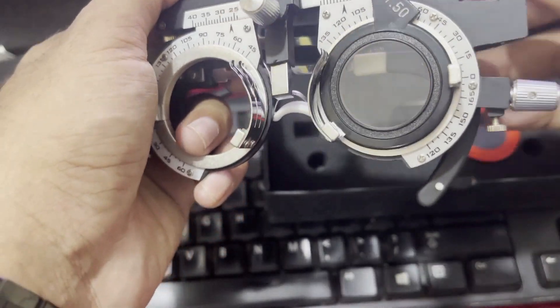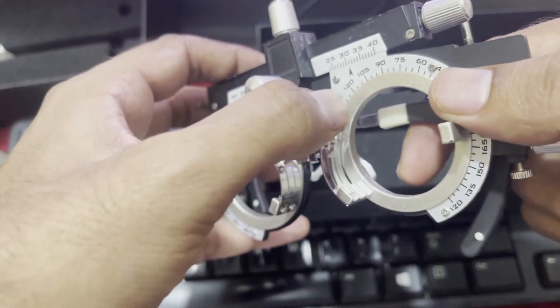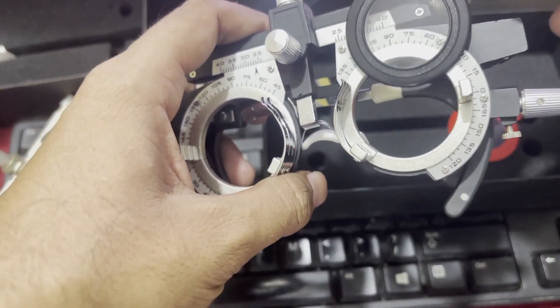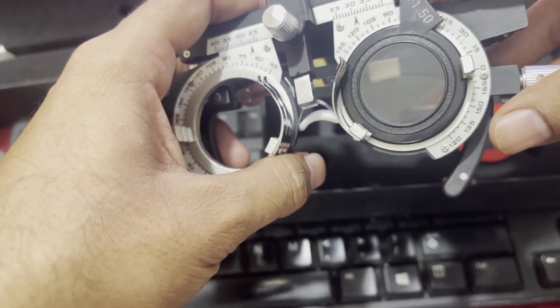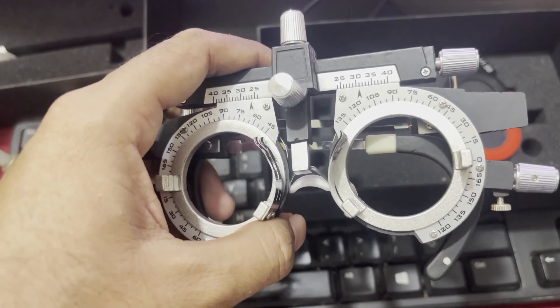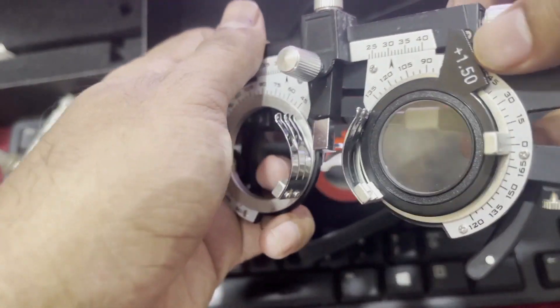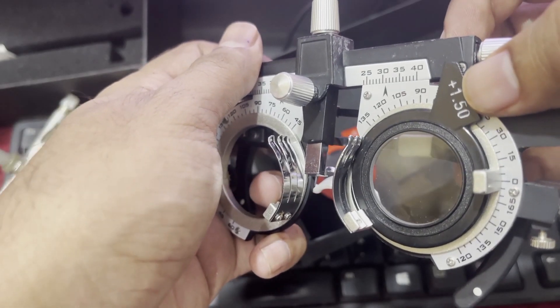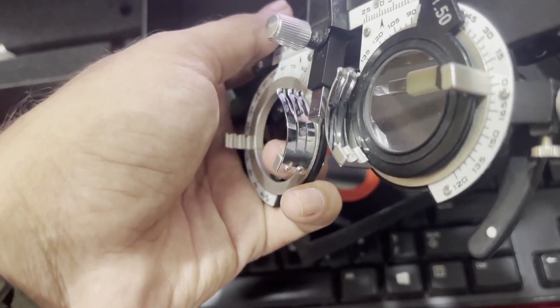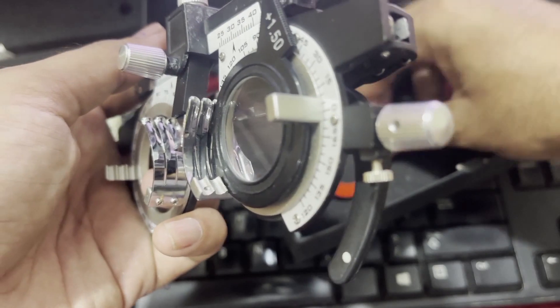Remember that the compartment clips should be very smooth and adjustable so we can easily put lenses in the trial frame. The first compartment is reserved for spherical lenses — for example, a plus 1.5 spherical lens. The second compartment is for adjusting the cylindrical lens.